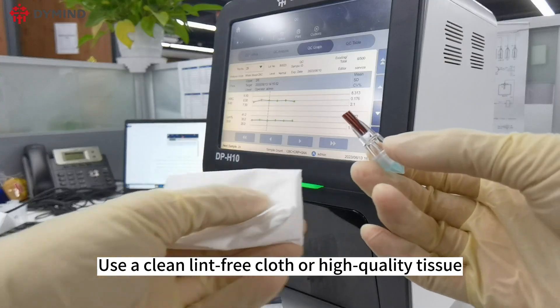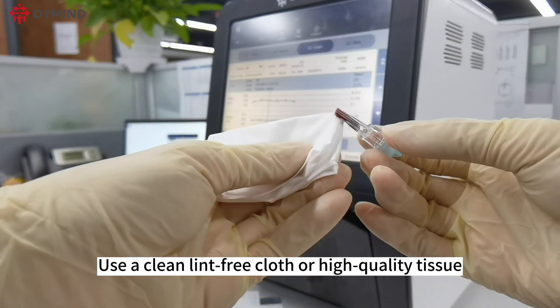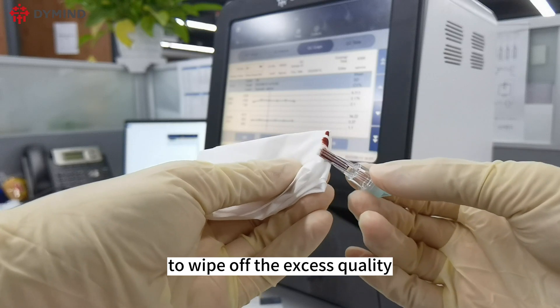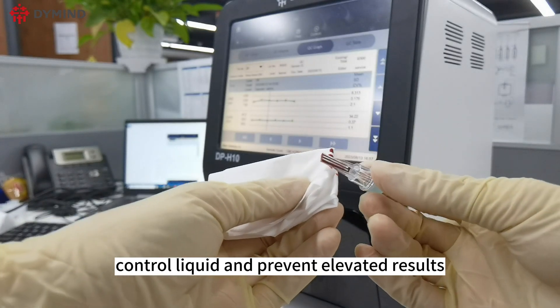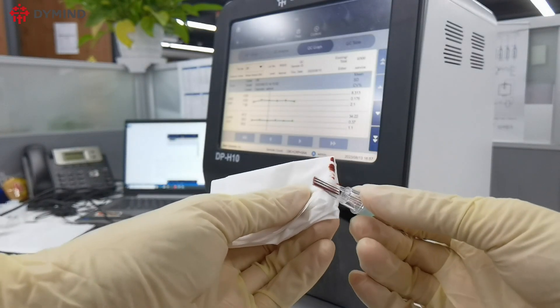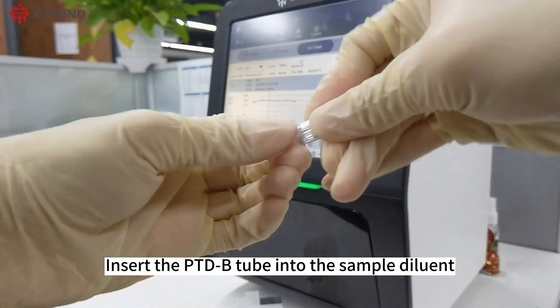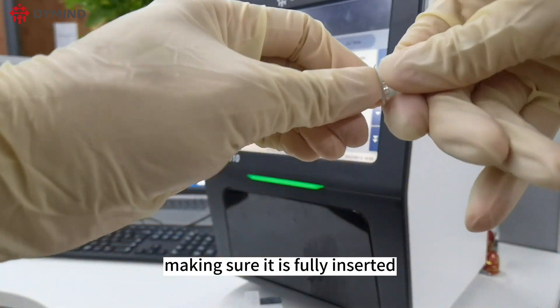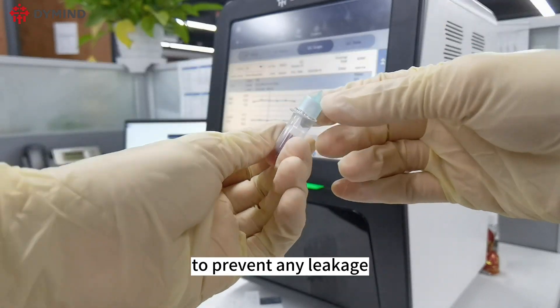Use a clean lint-free cloth or high-quality tissue to wipe off any excess quality control liquid to prevent elevated results. Then insert the PTDB tube into the sample diluent, making sure it is fully inserted to prevent any leakage.